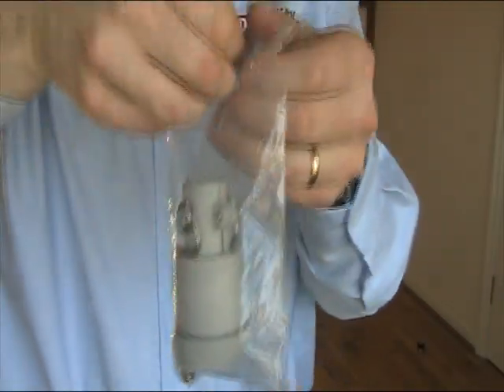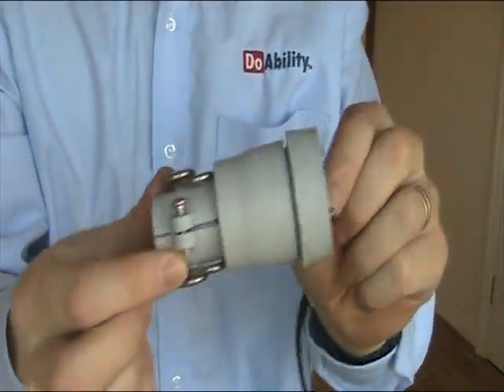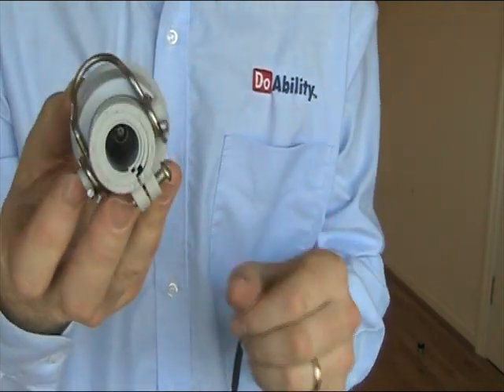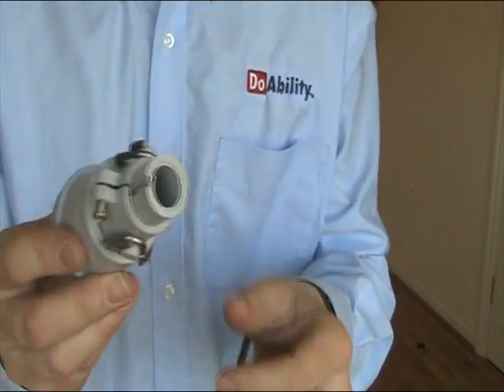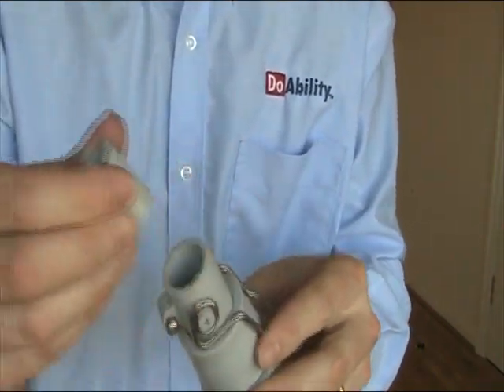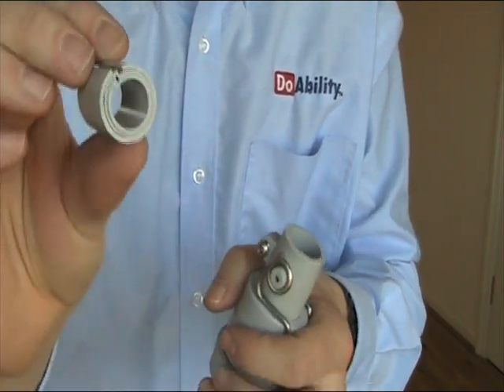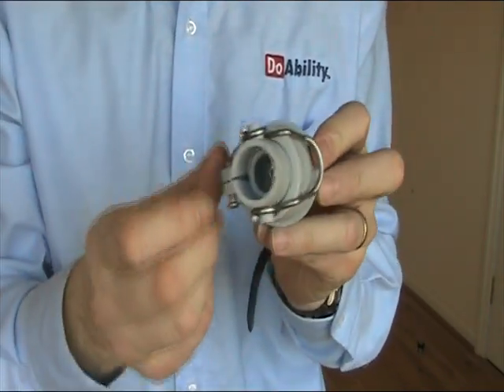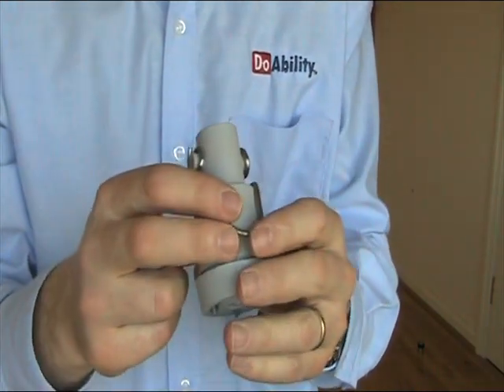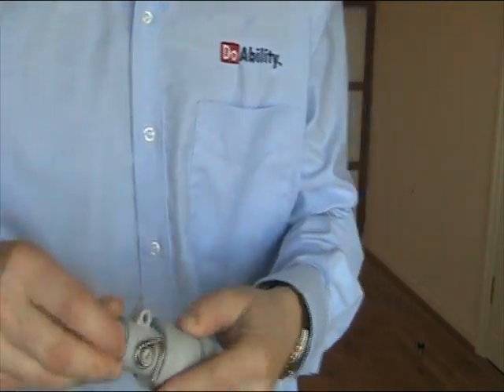The other type is a rubber mechanism which fits onto the bottom of your crutch or cane. It fits various different diameters — all you do is take out the different number of plastic inserts depending on the diameter of your cane or crutch. You can see that's the widest diameter and how this one works, so you just put that back in.